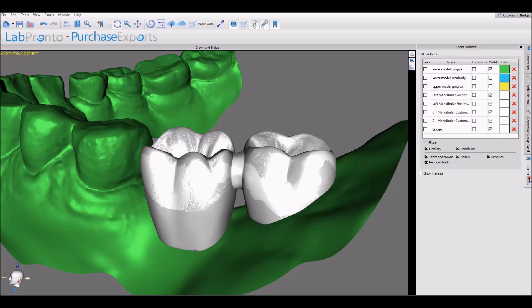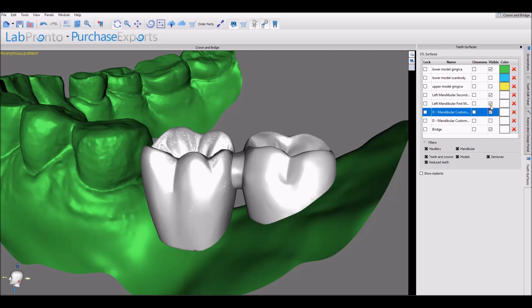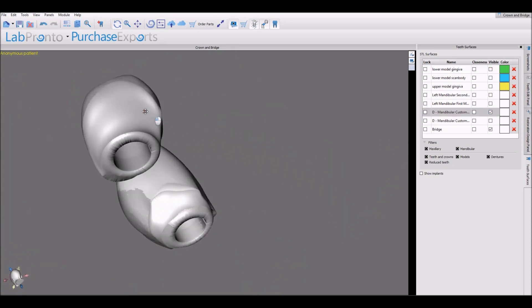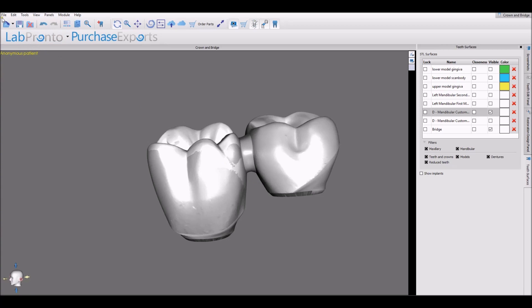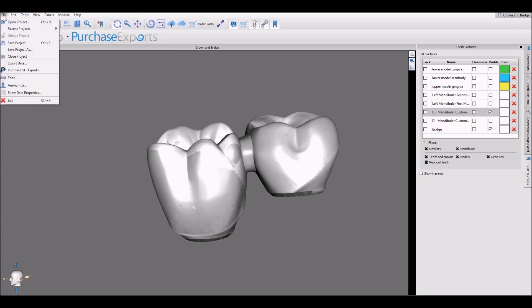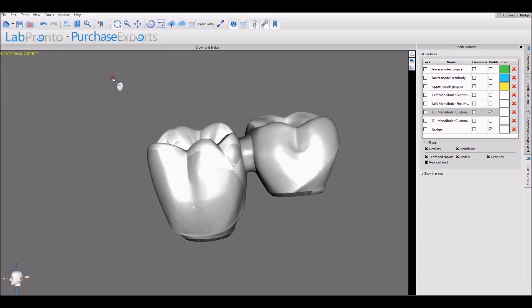When we switch to our surfaces panel, we now have many different surfaces here. We have the teeth surfaces — the original teeth surfaces themselves — we have the designed crowns that we've designed, and we have our new bridge. The bridge is designed by the software and ready for export.